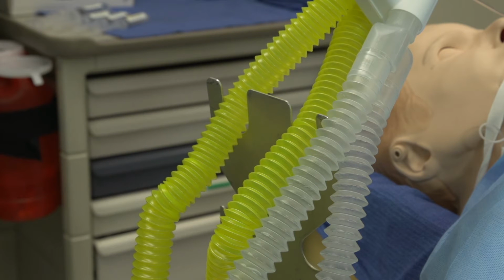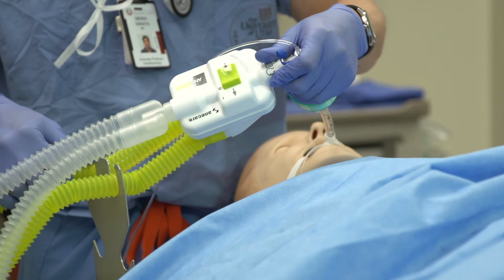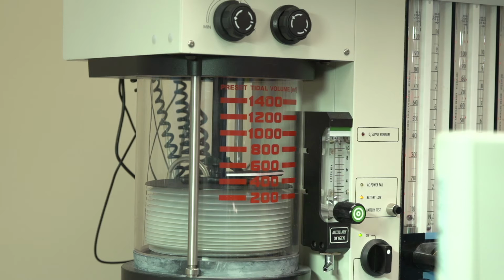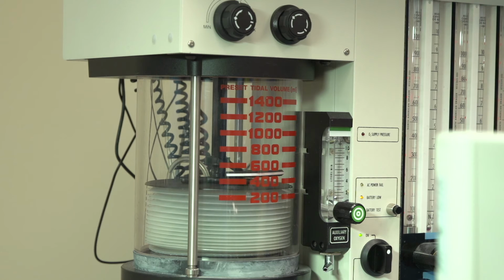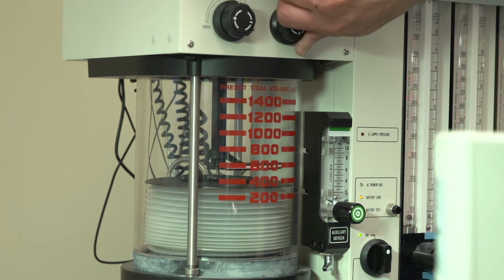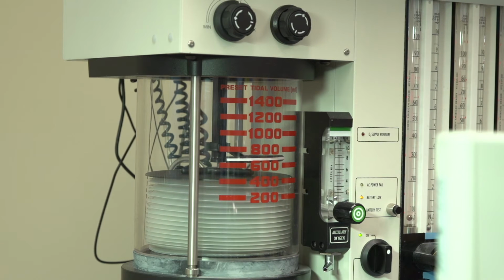While weighing only 6.8 ounces, supporting ANEclear with an airway circuit holder will relieve strain on the connections to the LMA or endotracheal tube. Use the adult-sized slots on the tube tree since the smaller diameter pediatric slots can slice the ANEclear rebreathing loop. ANEclear will work with all anesthesia machines and monitors as long as tidal volumes of 500 milliliters or greater can be delivered and the emergence minute ventilation is double that of the maintenance.